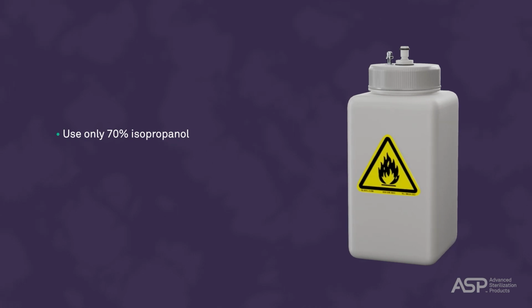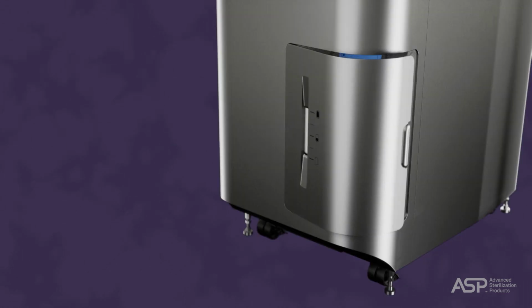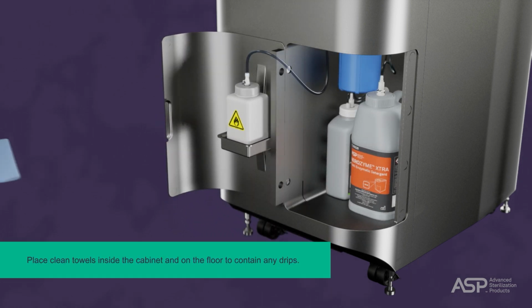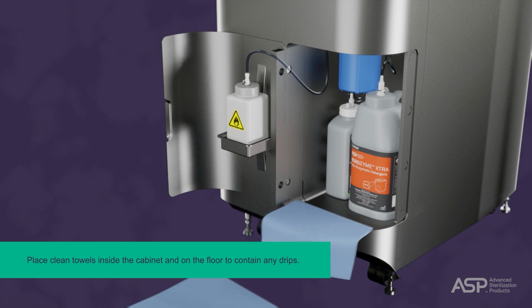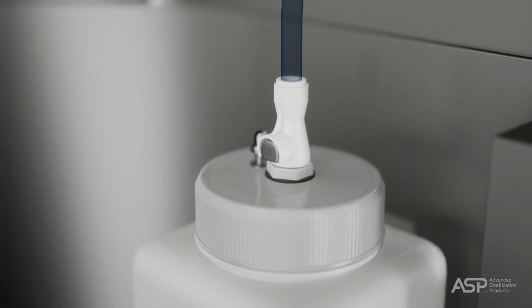Use only 70% isopropanol. To refill the alcohol, open the solutions compartment door and place clean towels inside the cabinet and on the floor to contain any drips. Next, remove the alcohol bottle from the solutions compartment door.